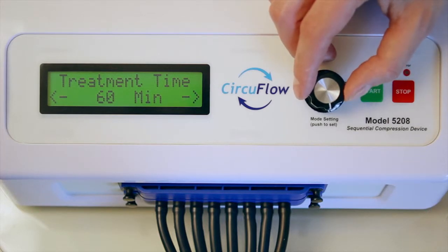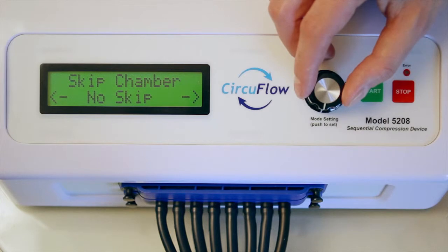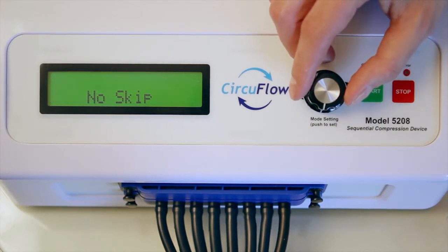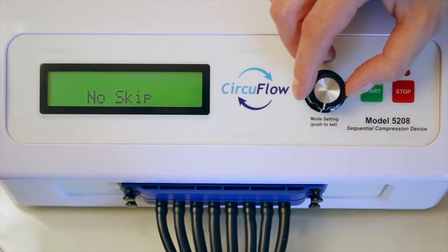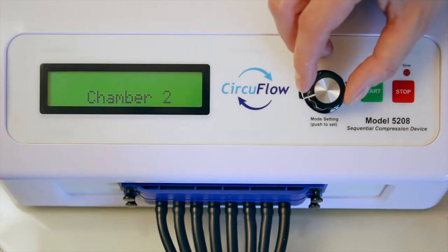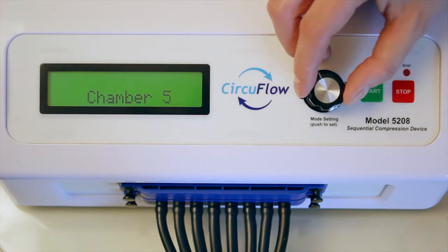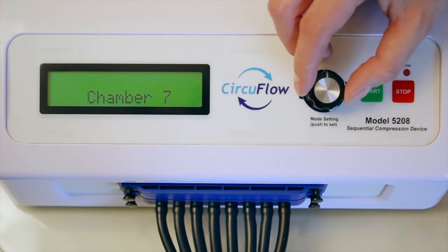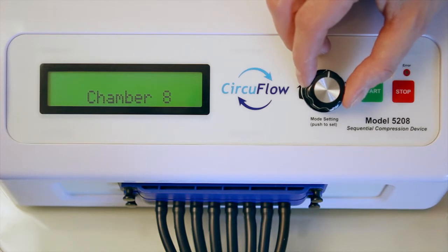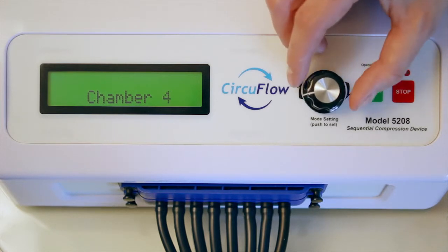Access the fourth parameter, skip chamber, by turning the knob to the right and pushing to select. Turn to the chamber you wish to skip by turning the knob to the right or left. Skipping a chamber does not mean the chamber selected to skip will not fill with air.